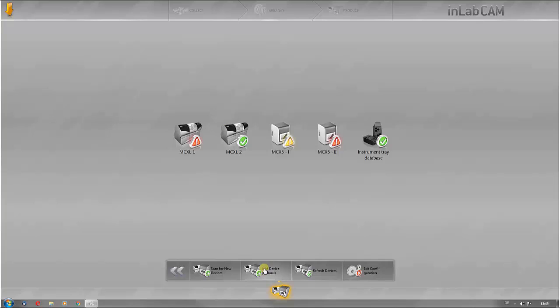You can also add mills manually. All machines are updated via the refresh function.